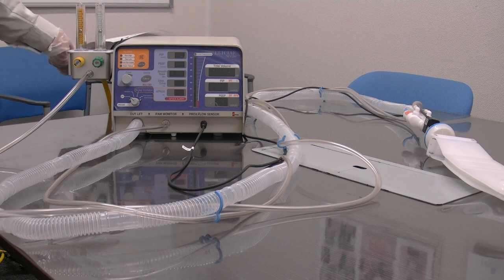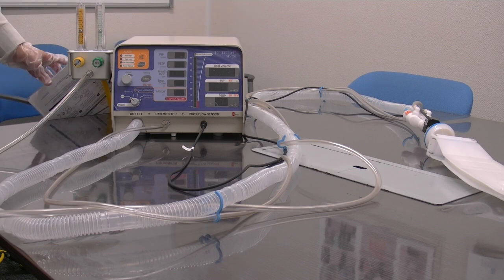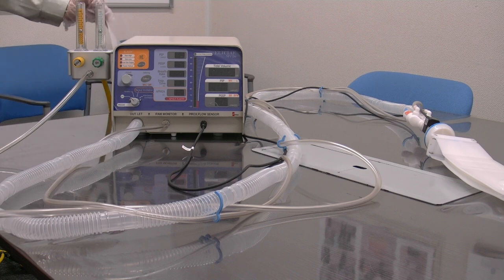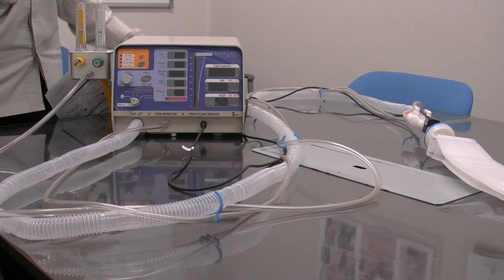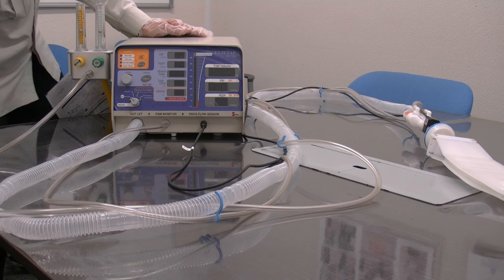Next, let's revisit the overall principle of the MV20 and the direction of the gas flows. We'll start with the exhalation phase.